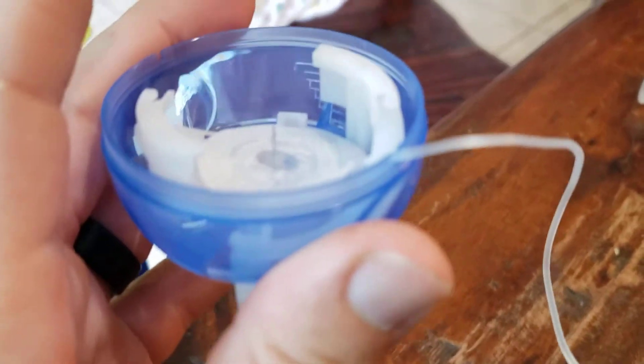I'm going to show you one quick little thing that Aiden and I like to do. He's putting it on his left arm today. There's a little hook that we hook the cord into to keep it in place when we put it on Aiden's arm.